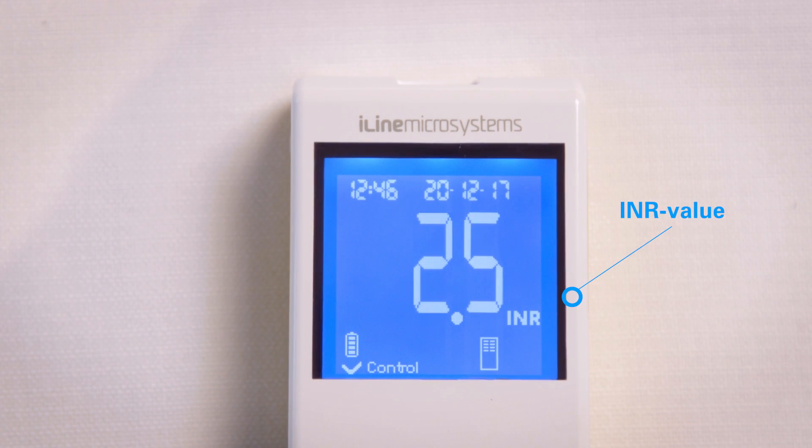Wait until your INR result appears on the screen. The INR value is automatically stored in the memory.